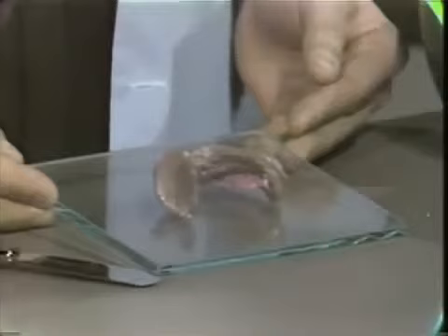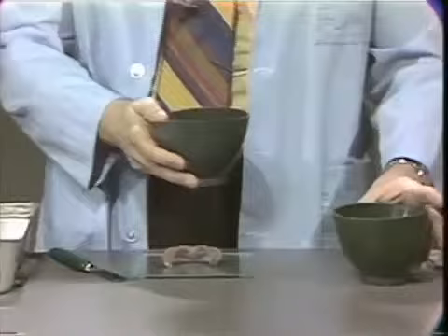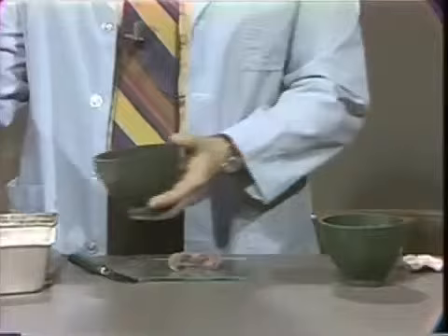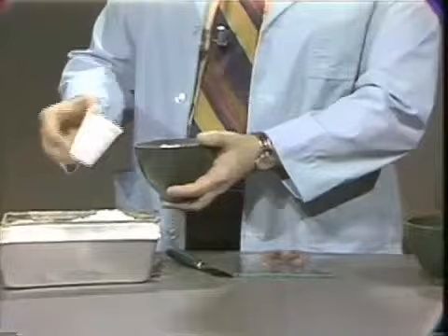It's a very simple technique. To begin with, I'm going to pour a little water in our mixing bowl. For this procedure, we use a ratio of one to one on a volume basis of impression plaster and pumice. You need a fair volume of this material to box the impression, and don't be afraid to use a little extra.